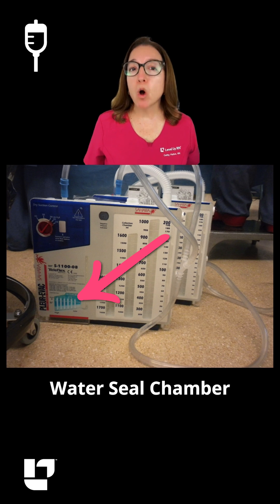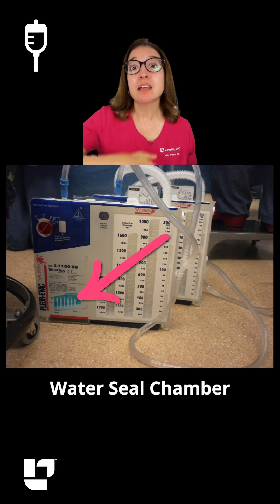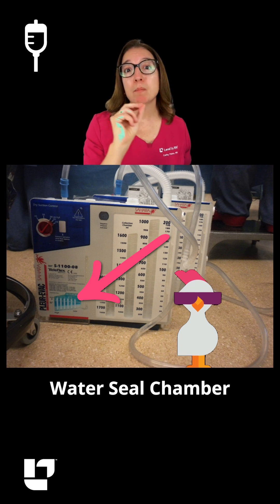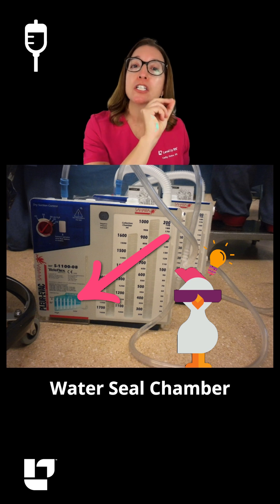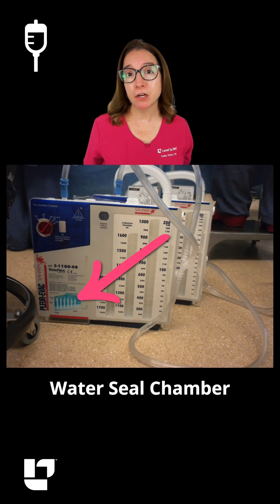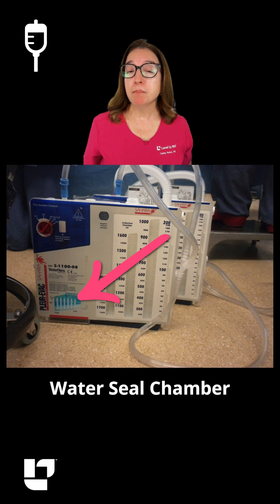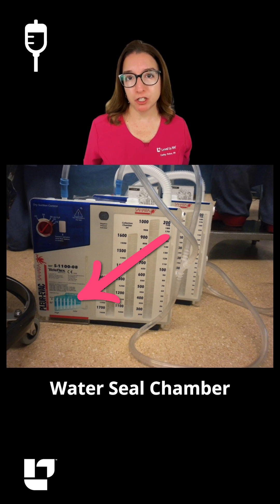Here we have the water seal chamber. We would expect to see tidaling in this chamber, which is the up and down movement of water. Our cool chicken hint to help you remember this is: seals swim in the tides, so tidaling is expected in the water seal chamber. If you see continuous bubbling in the water seal chamber, that is indicative of an air leak. And if there is lack of tidaling, this may mean that the lungs have re-expanded, or it can mean that there is some kind of obstruction present.